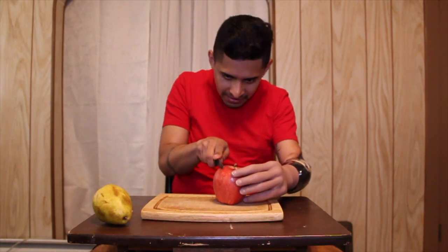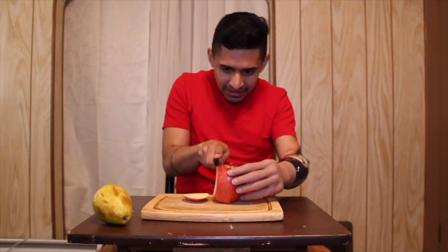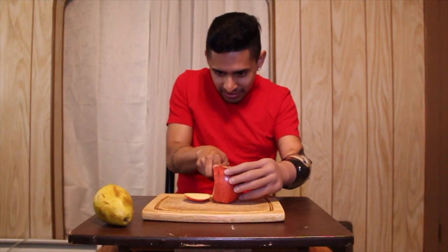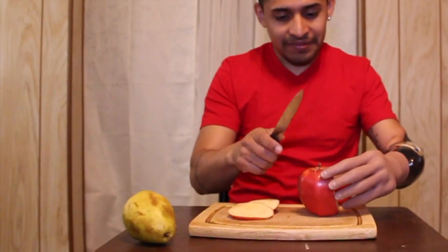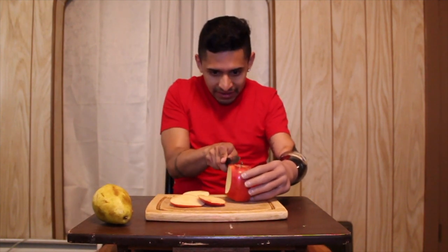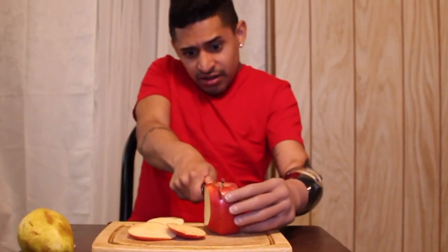First I'm gonna try to grab the apple, and next is gonna be the pear. Let's see how this thing works. Let's grab it — there, yeah, good. Let's do the other one, yep, do the other side.